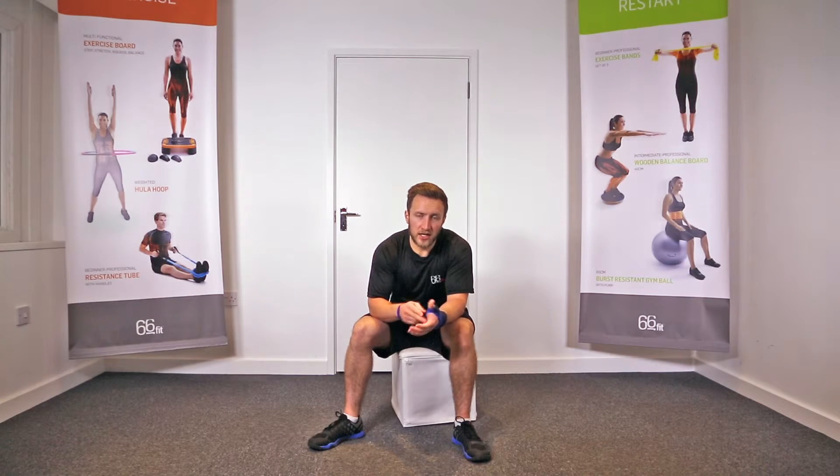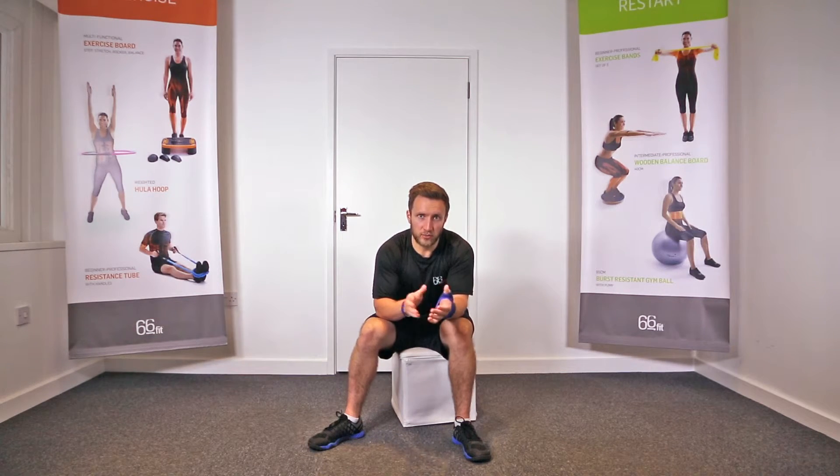The support itself is made up of 100% nylon on the outside and 100% neoprene on the inside. The combination of those two materials is going to provide plenty of warmth whilst you're wearing it, as well as the support from the wrist brace.